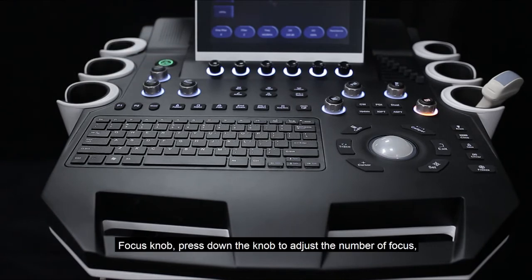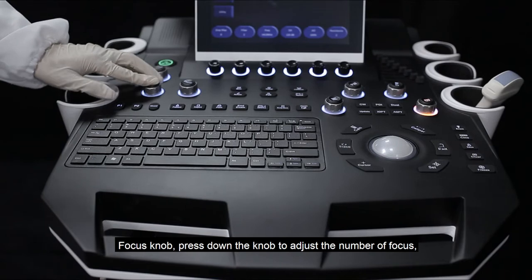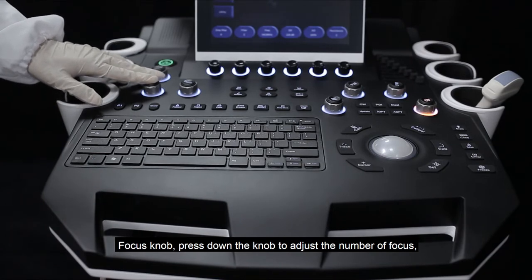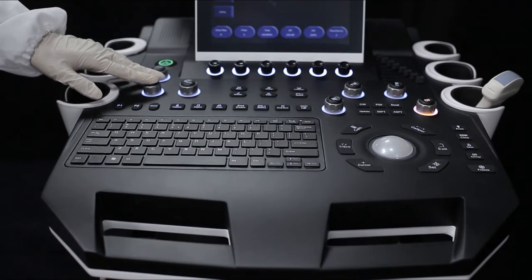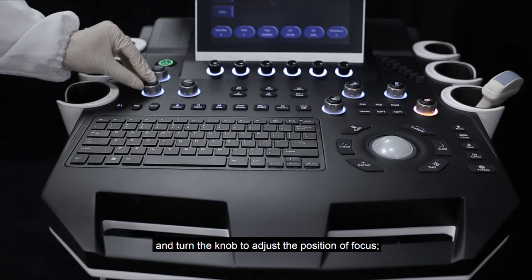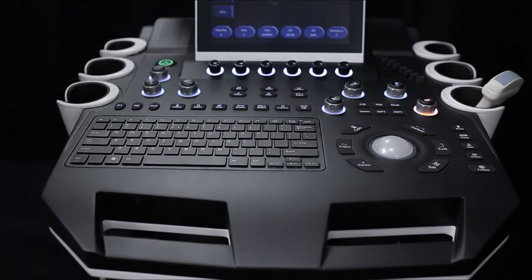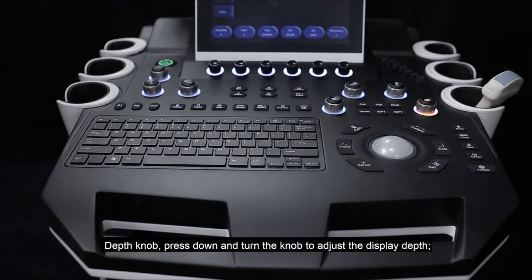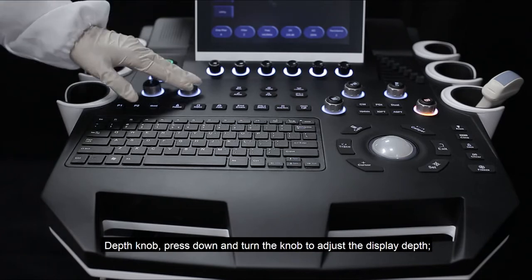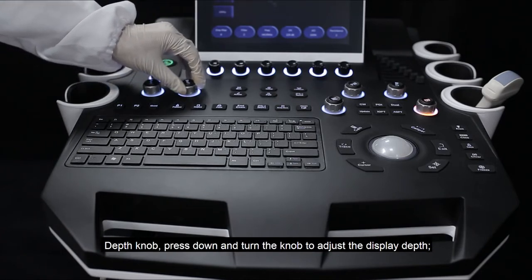The focus knob: press down the knob to adjust the number of focus points, and turn the knob to adjust the position of focus. The depth knob: press down and turn the knob to adjust the display depth.